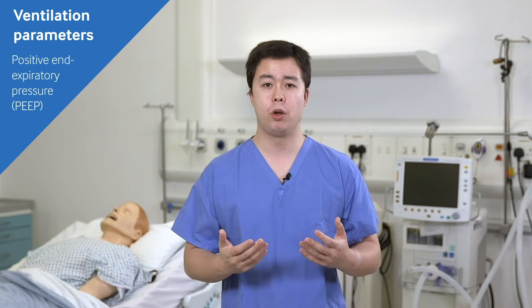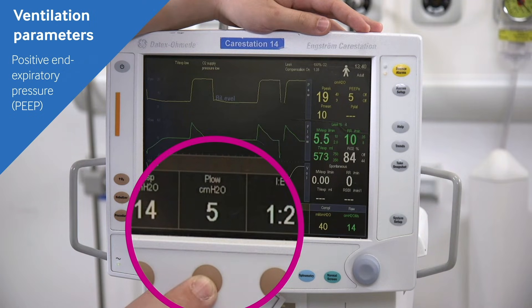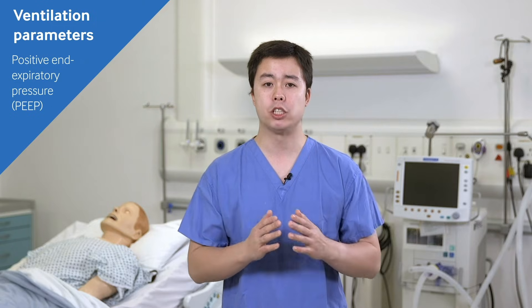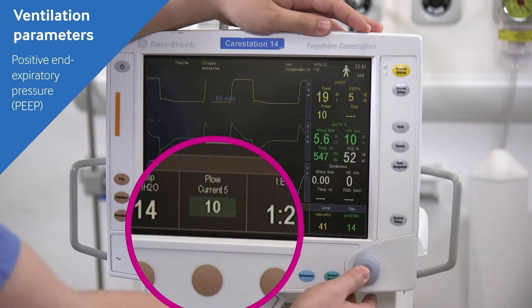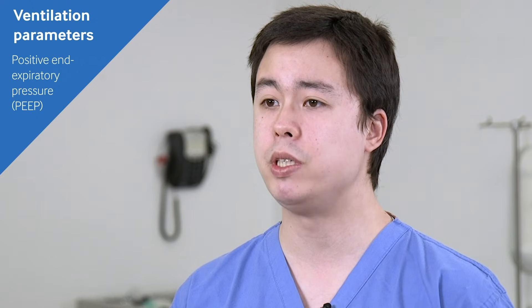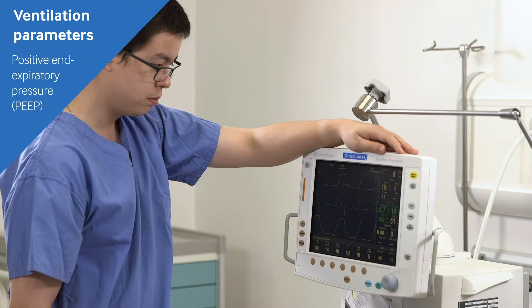PEEP is a baseline level of pressure which will splint open the small airways and alveoli, allowing for maximum oxygenation and gas exchange, and preventing atelectrauma — the damage which can occur when small airways open and collapse due to sudden loss of pressure during expiration. Too much PEEP can be a problem, however, because it raises intrathoracic pressure, which will impair venous return to the heart and can potentially cause hypotension.